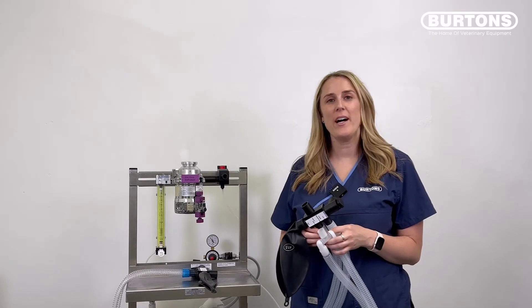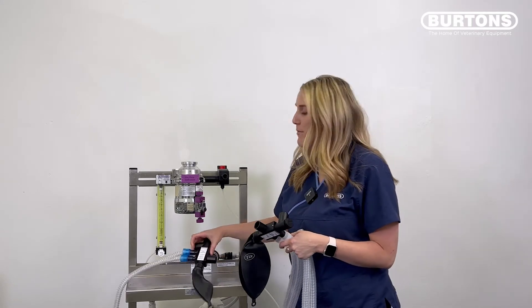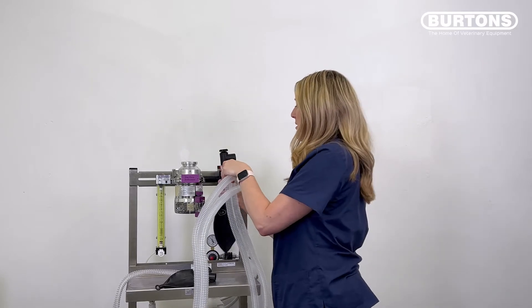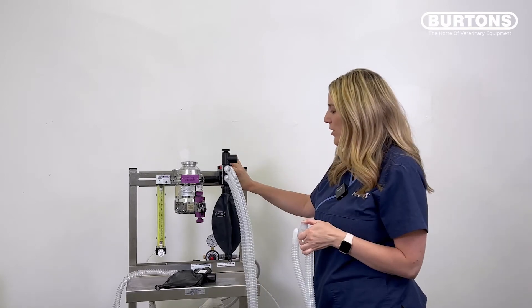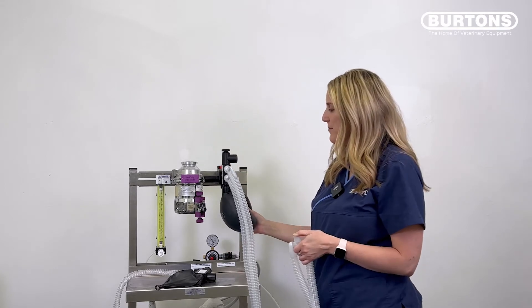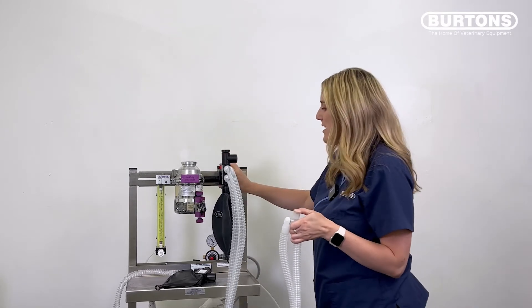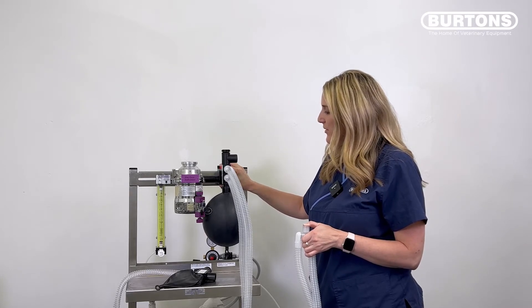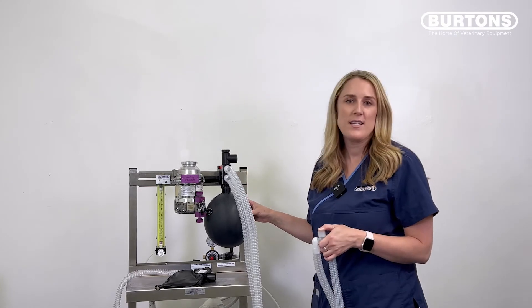In this video I'm going to show you how to leak test a LAC breathing system. It doesn't matter if you have the normal adult LAC or the mini LAC — it's the same test. Introduce the LAC onto the common gas outlet with scavenge attached, occlude the patient end, and introduce oxygen flow to inflate the bag. Make sure the scavenging valve is closed; otherwise the bag will just empty. Once the valve is closed, with your finger over the patient end, introduce oxygen flow and you'll see the bag fill up and hold pressure, remaining nice and taut.